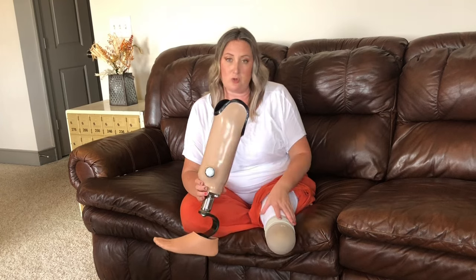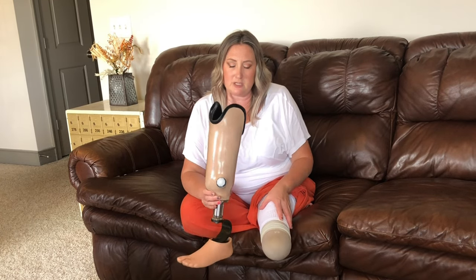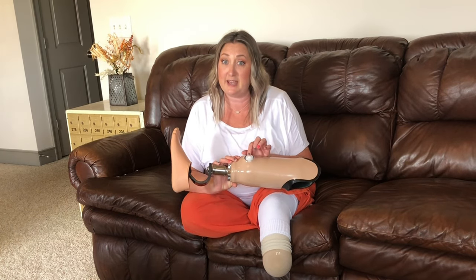Apparently with Pinlock you have great knee range of motion and far less limited mobility, and it's a quick on and off — you just push a button and your leg comes out. The ones who love Pinlock really love it. And I would actually like to try a hybrid: I'd still like to have my vacuum suction socket but with a pin at the bottom, so it would still have the ring system and some suction, plus the pin. The reason is because I have bumped this valve up against something and it opens — all of a sudden I take a step and I'm not suctioned into my socket and can feel my limb almost coming out of it. If I had that Pinlock on the bottom and that valve opened, at least I know my leg won't fall off.